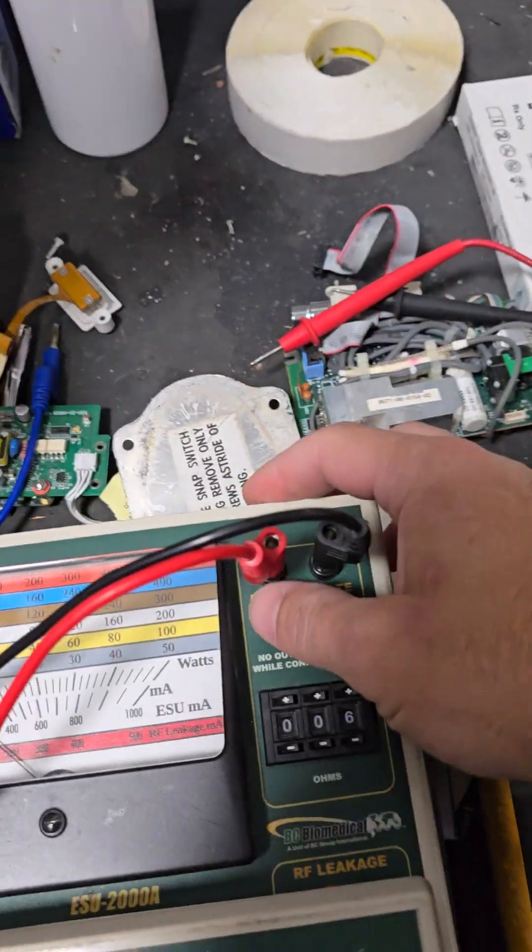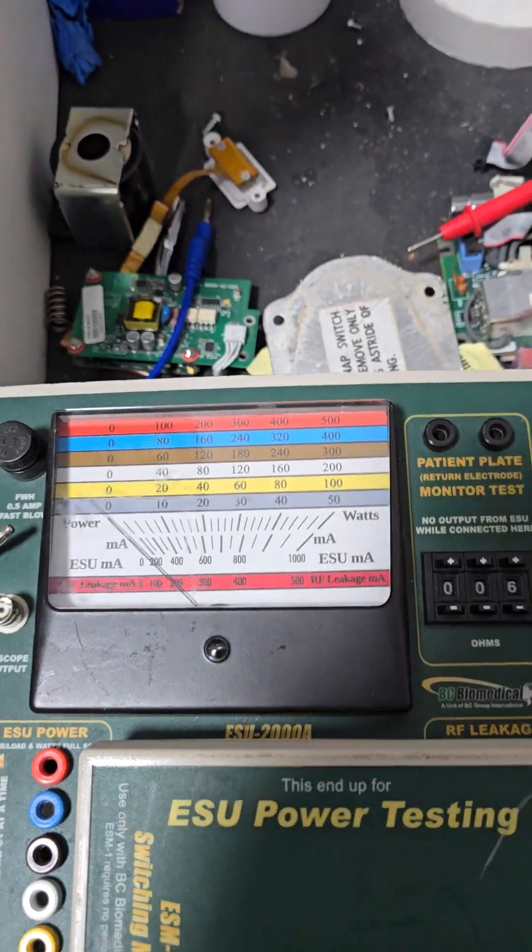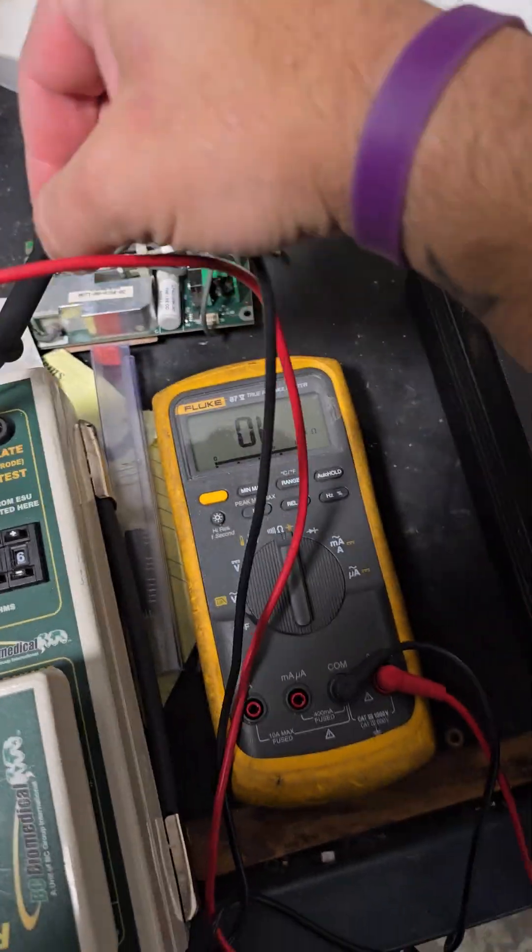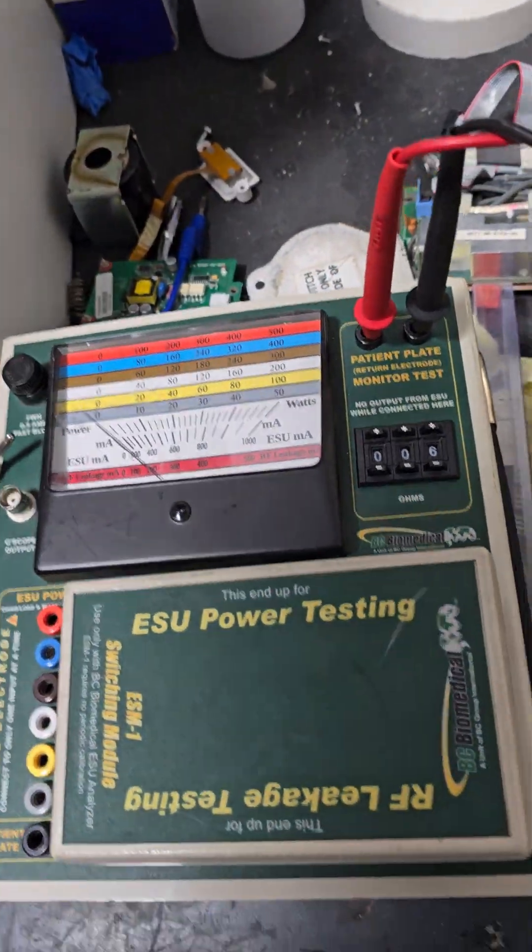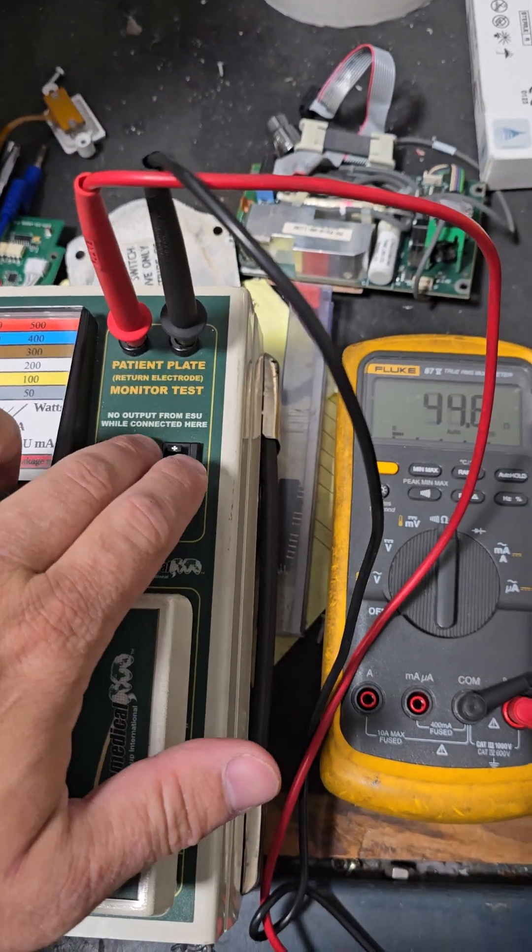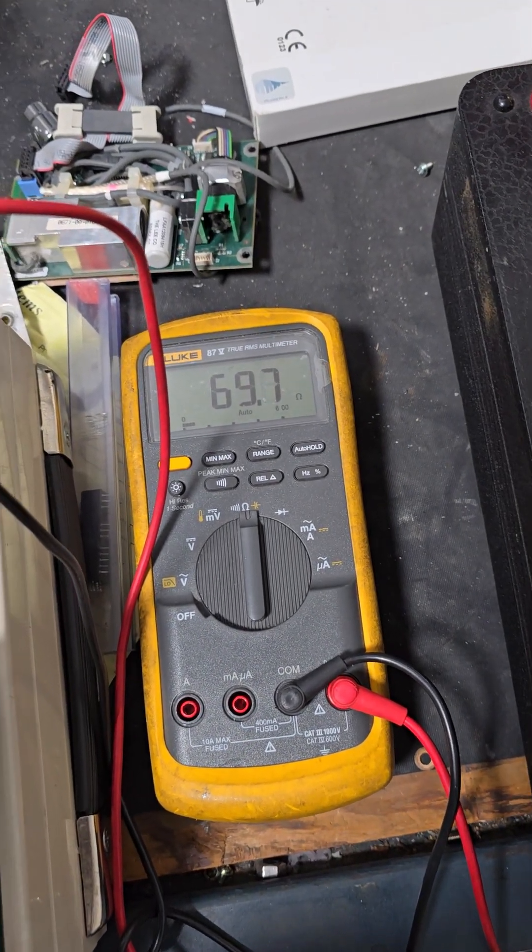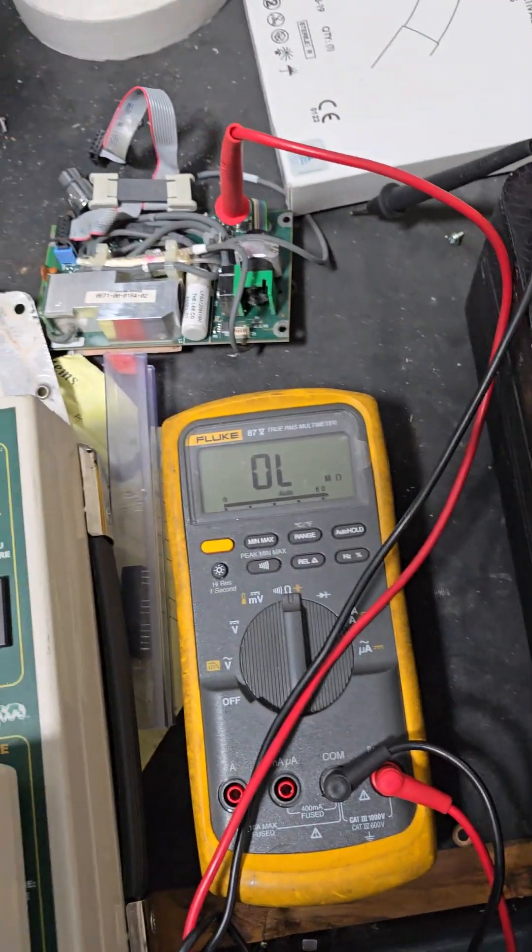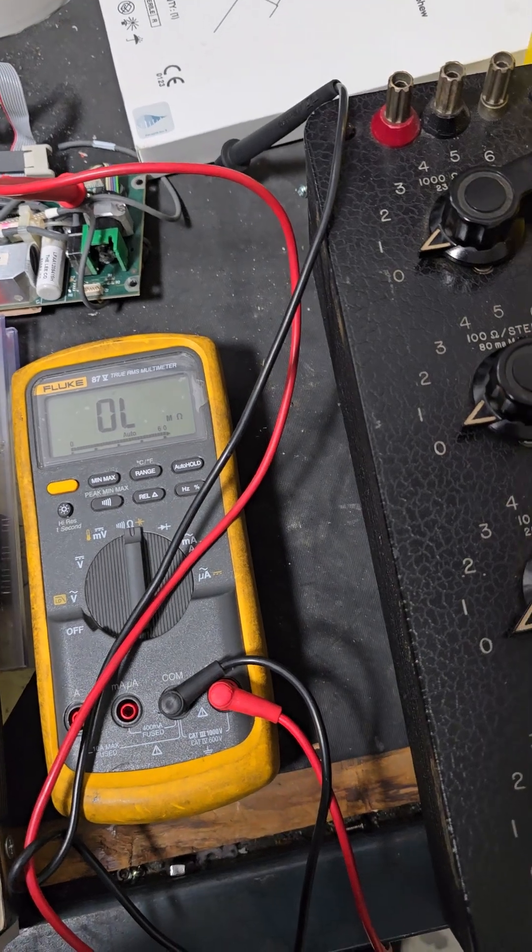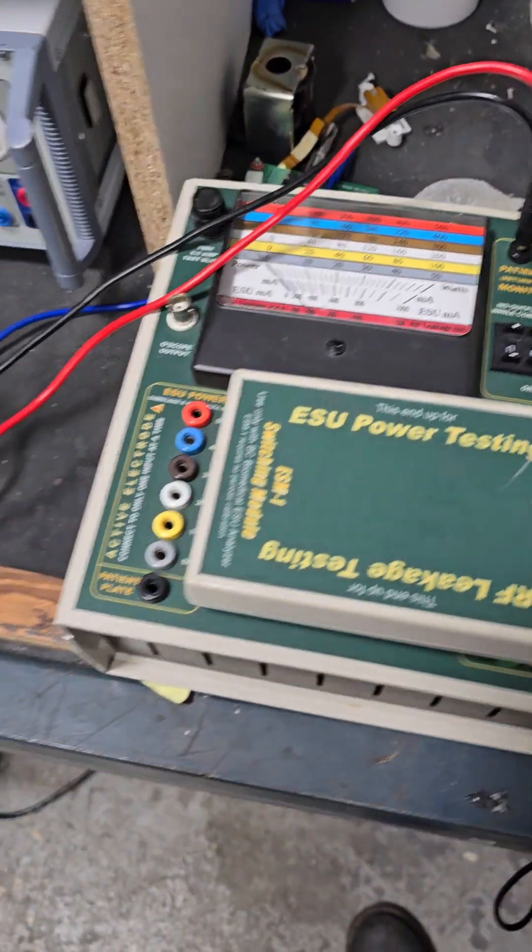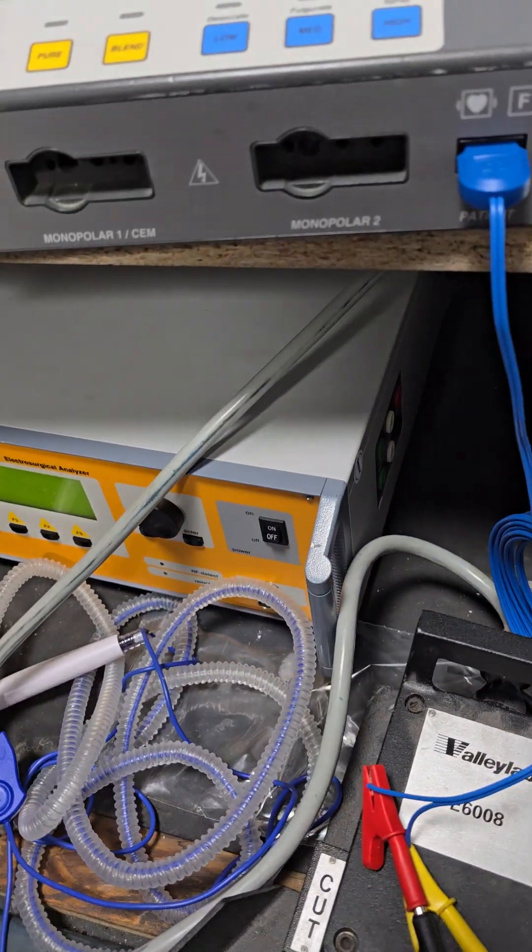I'm going to go up to the next back, 7. Let's go back over here. Let's get us up to 70, close as we can get. And yes, obviously this means this just needs a good calibration. 69, here we go. Looks pretty darn good. I'll take a 0.3. Maybe later on I'll figure out what the resistance value of these cables actually are. Alright, let that sit for a hot minute.